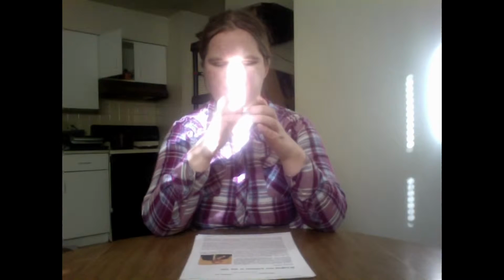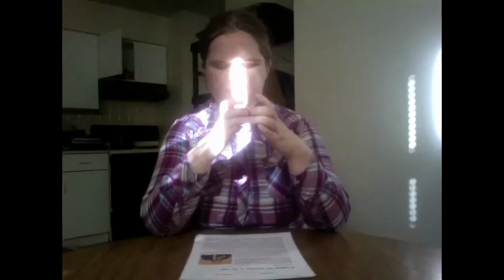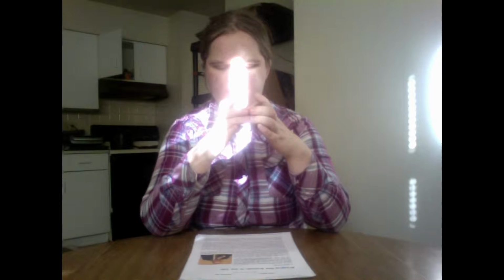So I've got it about centered now, and I'm going to lift up the phone to where I can rest my elbows comfortably on the table and the phone is comfortably in my hands. Now, the next thing I wanted to do is to take a field of view report. This is going to allow me to see how good my potential picture is. Field of view report. All 4 edges are visible, rotated 0 degrees clockwise. That is exactly what you want to hear from the reader.